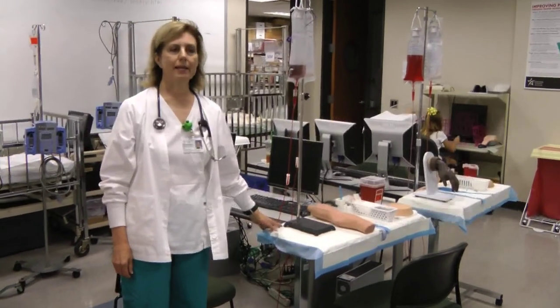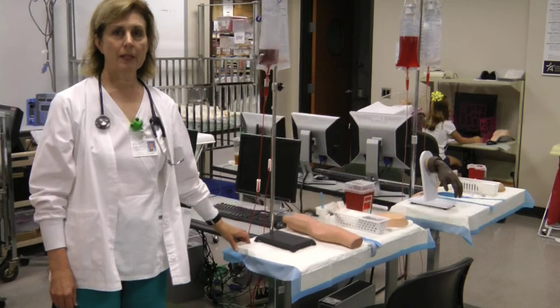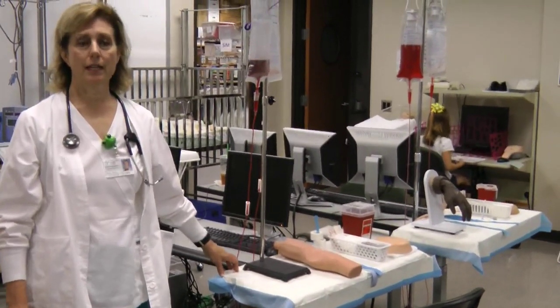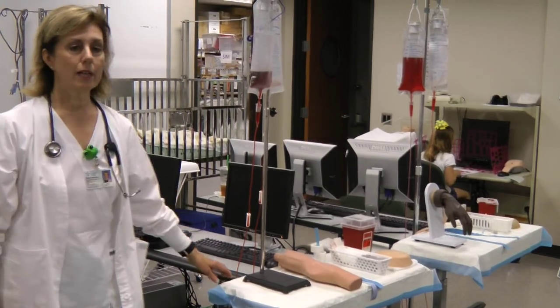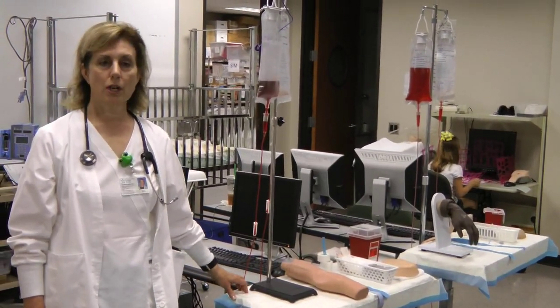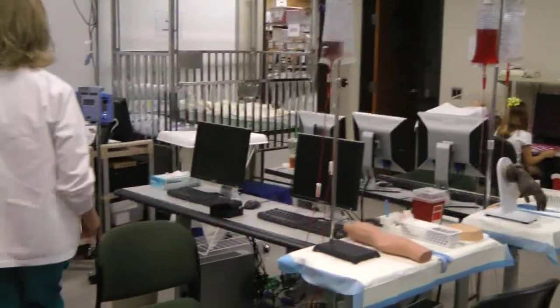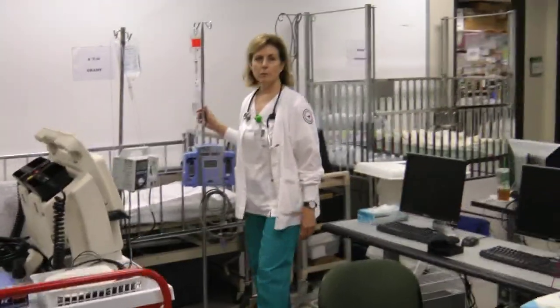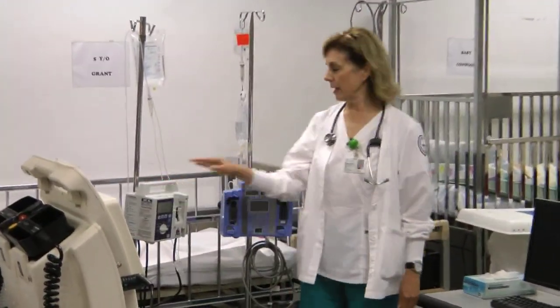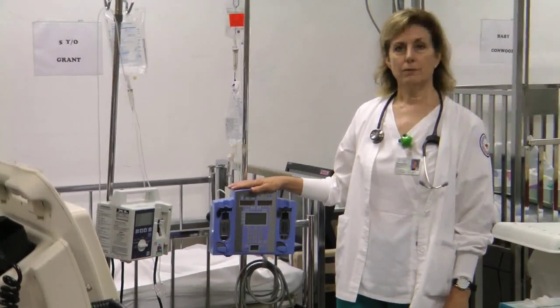In the future, you may need to start an IV line or give a medication via infusion pump. Here at Kingwood College Hospital, we do not start IVs on our high-fidelity mannequins. Instead, we have an IV table here with everything that you will need, and this is where you would start IVs for your patient. There are also infusion pumps. At Kingwood College Hospital, we have two types of pumps. One is the Plum and one is the Alaris. You'll be learning more about these pumps later.